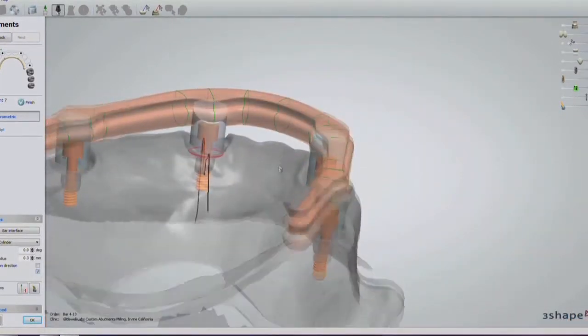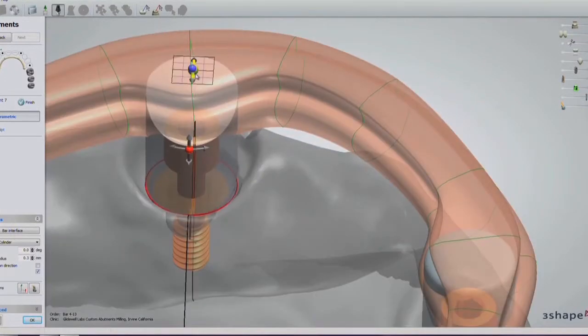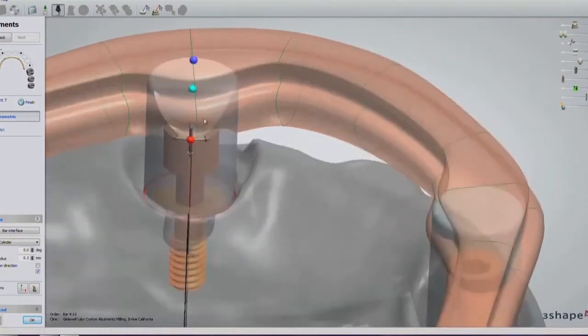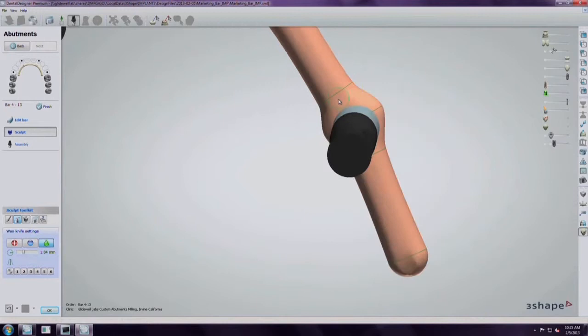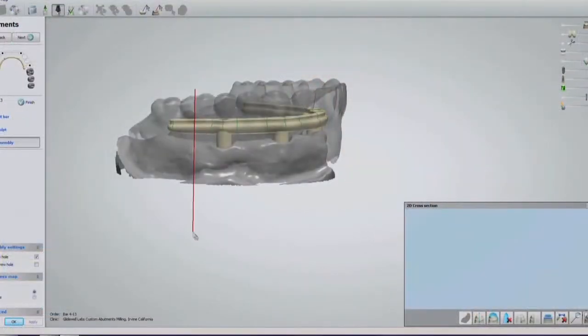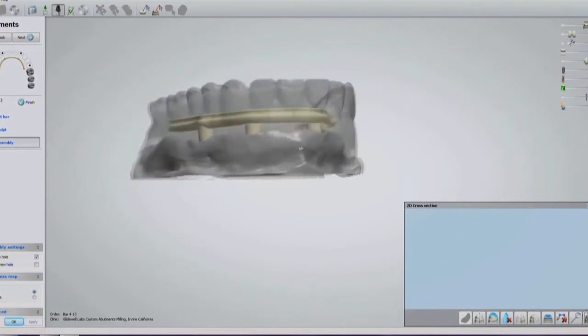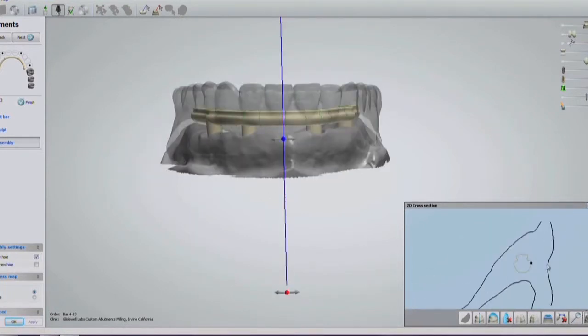Either way, the technician manipulates every aspect of the bar with a level of precision measured in microns. This enables the technician to set the height of the bar and craft its shape for maximum strength, optimal comfort, and proper support for the acrylic buildup.